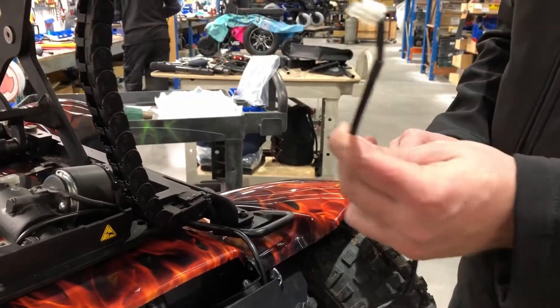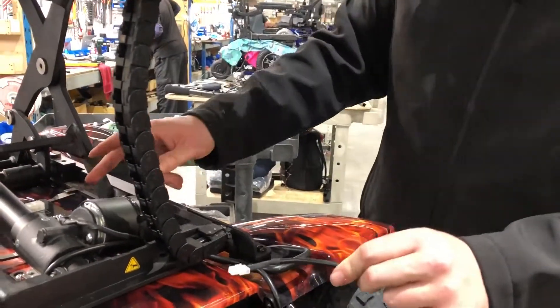The other thing we need to remember is to plug the steering lock wiring back into the circuit board under the seat.